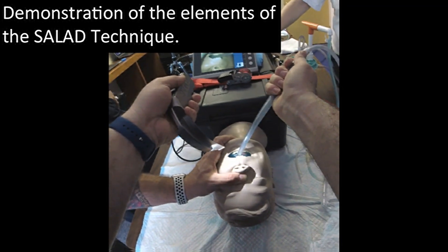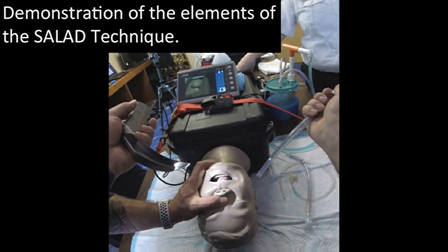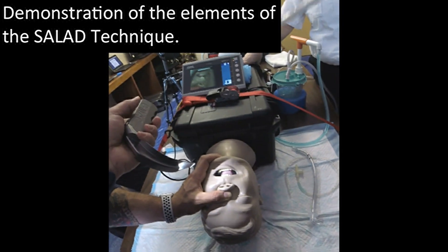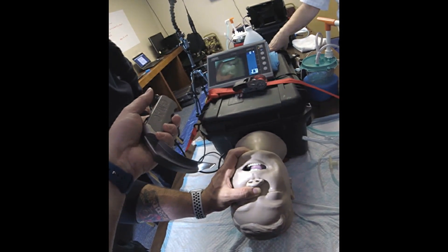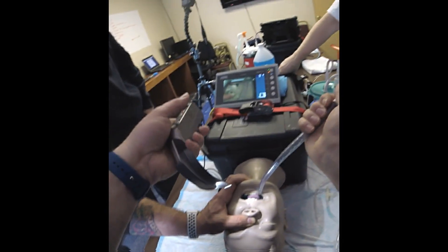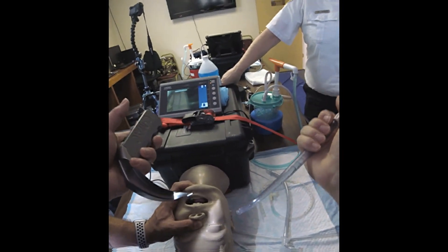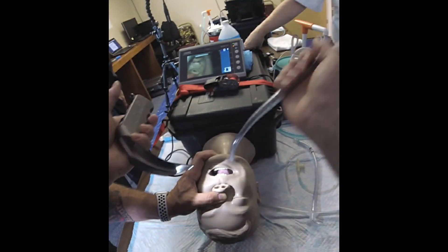What I've got here is Micrognathia or Trismus. I've had a case involving this where I placed a supraglottic airway — I had to go into the mouth, behind the molars, run into the front of the mouth, push the tongue and jaw down, and put the supraglottic in. It does work — I've done it. I did it with a standard Yankauer, which is really flimsy. I didn't have this device.